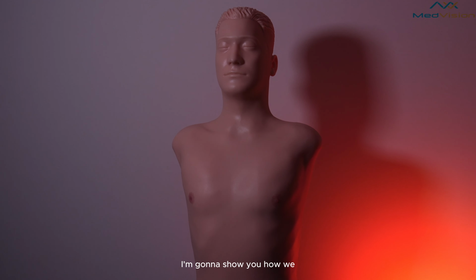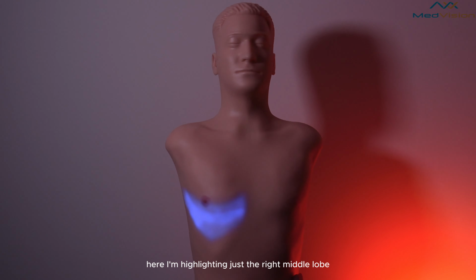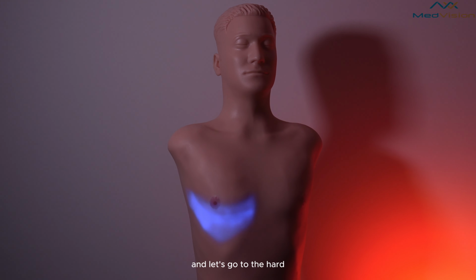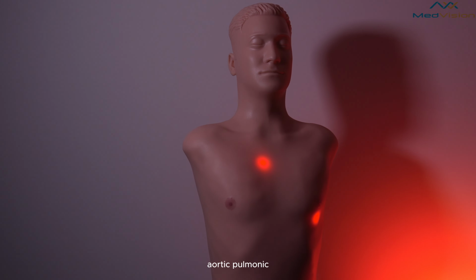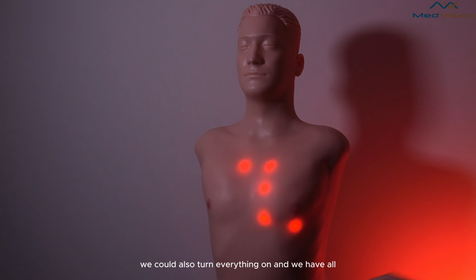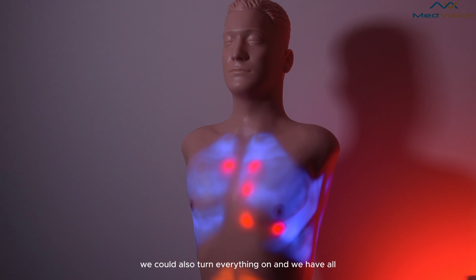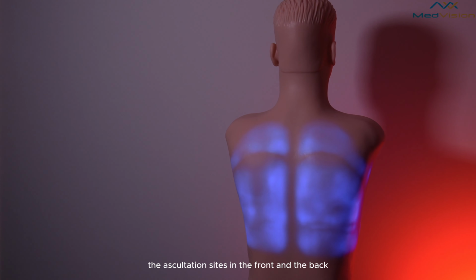I'm going to show you how we highlight the different auscultation points. Here, I'm highlighting just the right middle lobe. And let's go to the heart. Here, I have the mitral valve, aortic, pulmonic, tricuspid, Erb's point. We could also turn everything on, and we have all the auscultation sites in the front and the back.